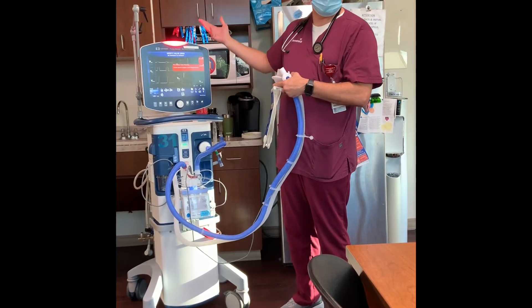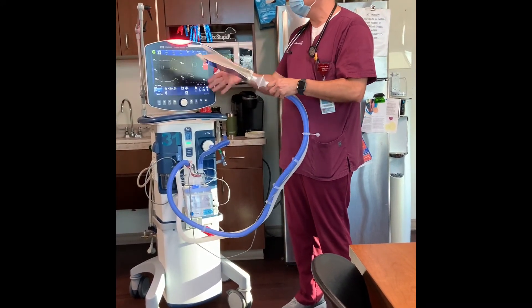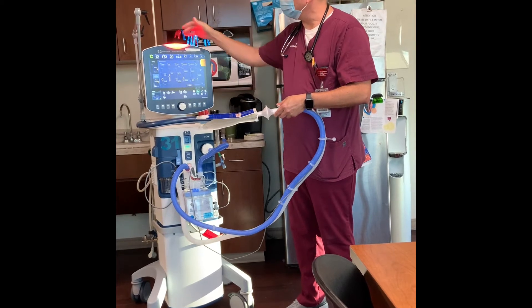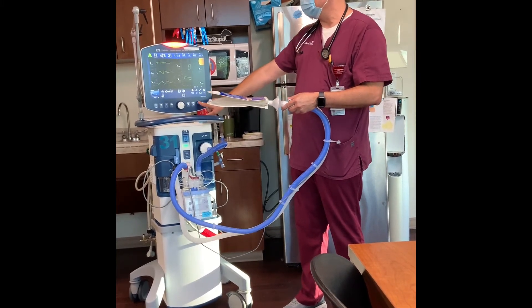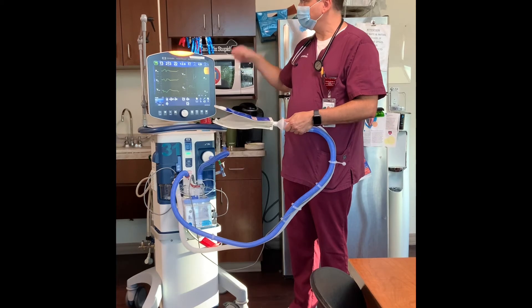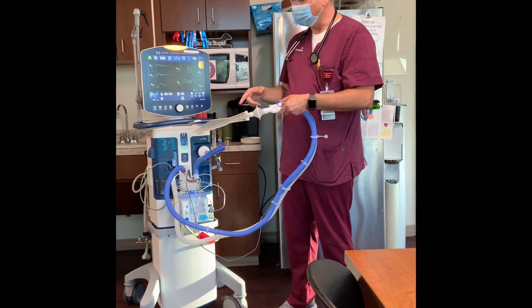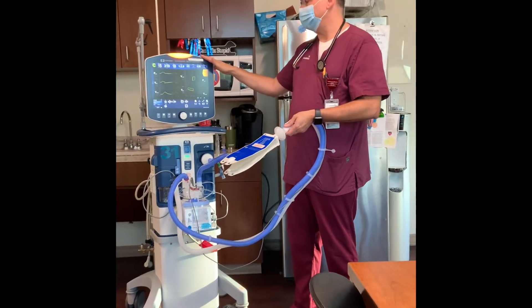When you reconnect the patient and they start ventilating again, the ventilator will go ahead and resolve the alarm. It will still show that an alarm occurred, but it's no longer an active alarm. There's an alarm reset button right here you can hit. Normally this section will be clear — it's showing yellow here because I don't have an air supply hooked up. The number one most common vent alarm you'll hear is that circuit disconnect — it's an immediate high priority alarm, so please go in and check the patient.